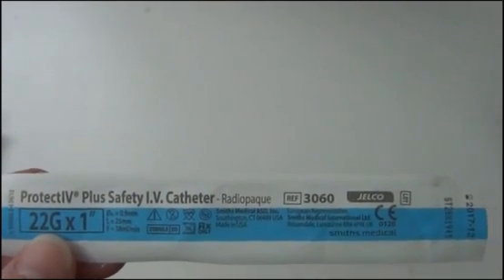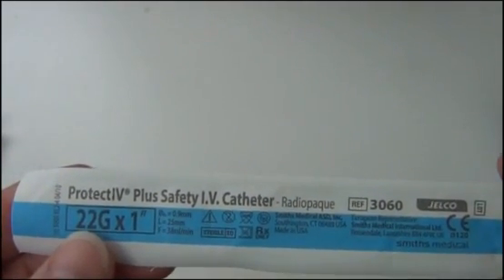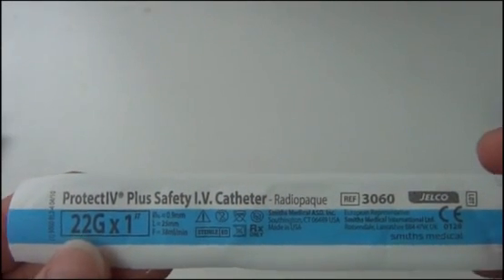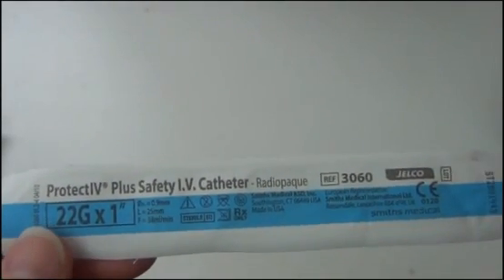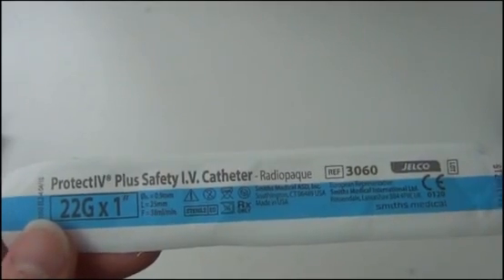Now, of course, there are 24, there are 14 and 16. A lot of times in the OR, they'll put the 14 and 16. If you need to get blood products, you want to have at least a 20, because they're much bigger. For albumin, also, 20 is always best.